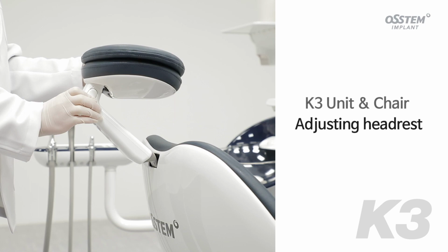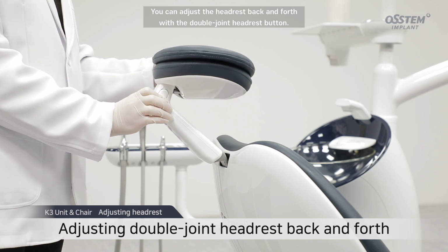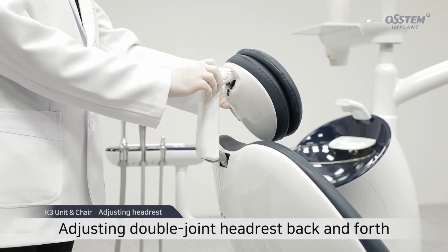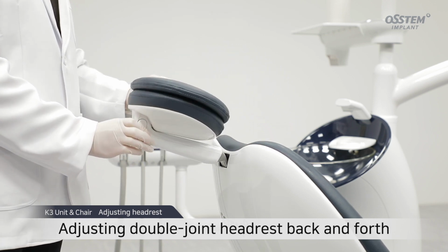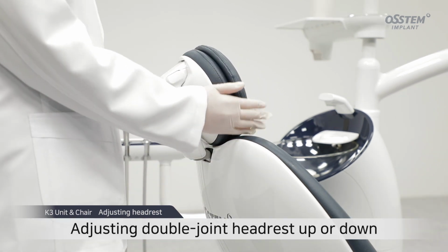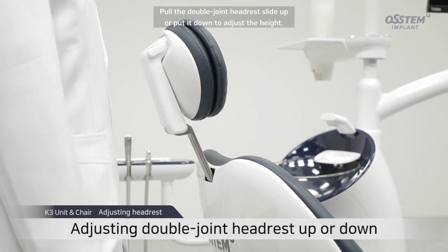Adjusting headrest. You can adjust the headrest back and forth with the double joint headrest button. The double joints enable a greater range of motion compared to a single joint. Pull the double joint headrest slide up or put it down to adjust the height.